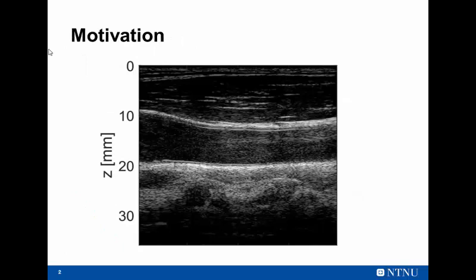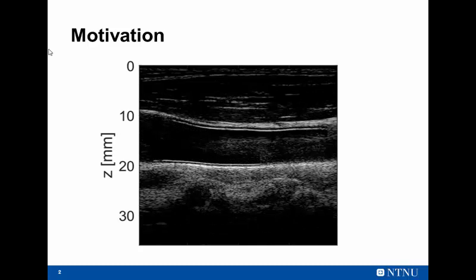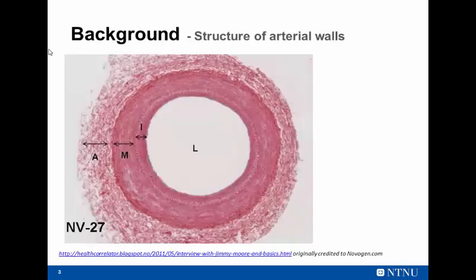First, just to make sure that I grasp your attention, and before getting into the details of the method, I would like to present you one of the last results that I will show, which are what you can do with this intima lumen detection algorithm. So this is an unprocessed image of my carotid artery, and this is the result that you can get with this algorithm that I'm about to present to you. Before and after.